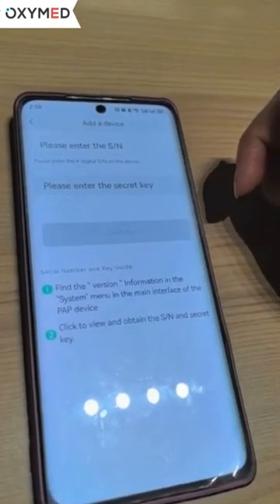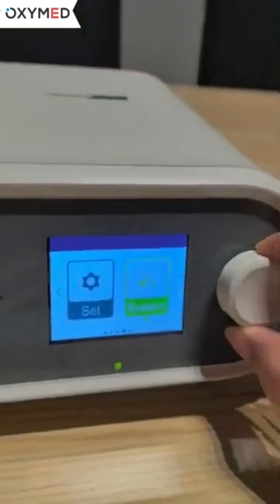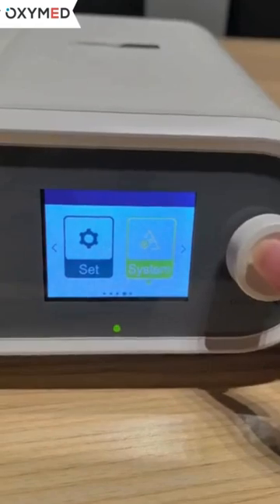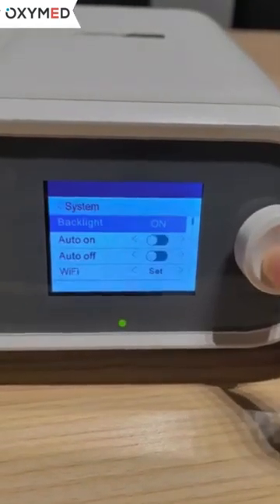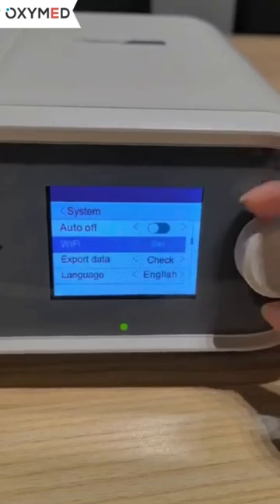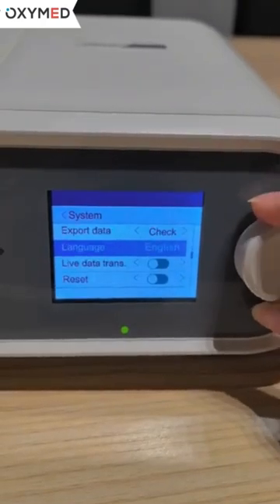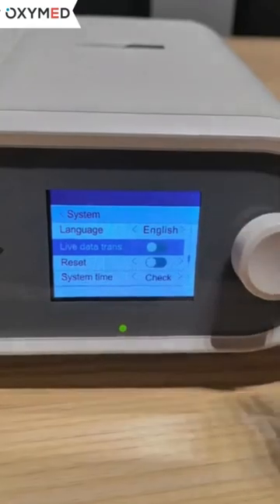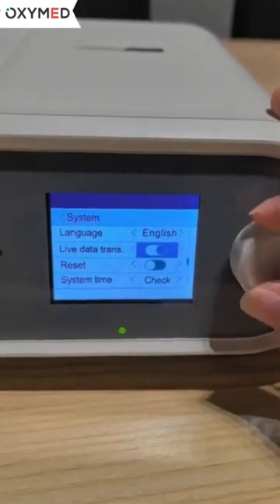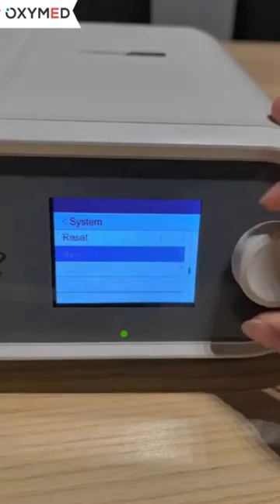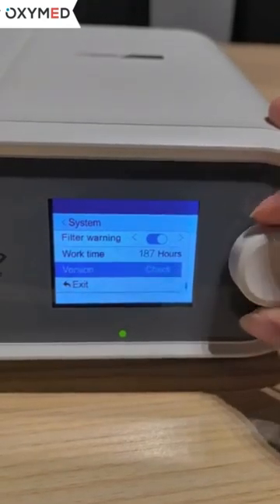Next, we enter the device system menu and press it. Then we rotate the control button cursor to 'Data Transfer' and turn on this function.